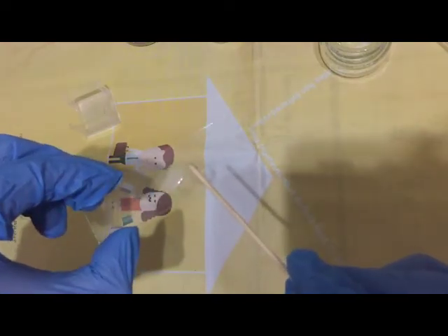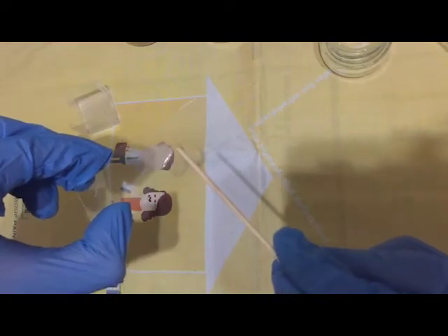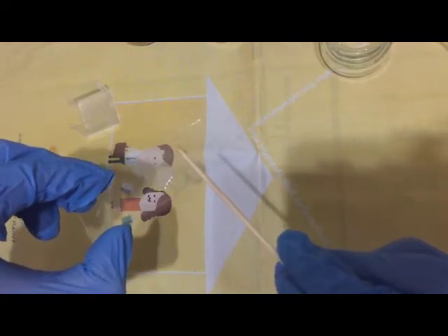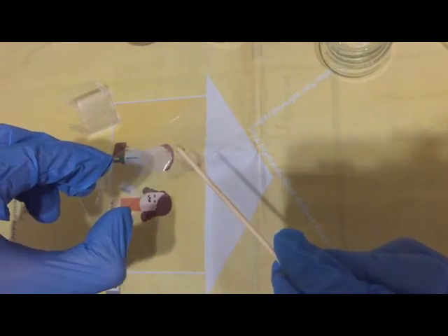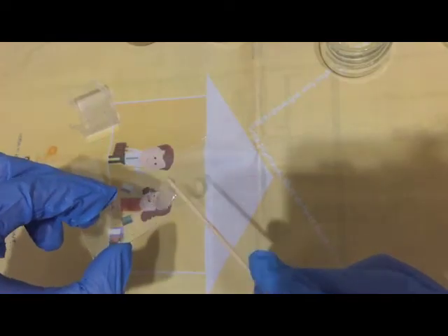So I hope you can appreciate the turbidity there. Let's put it over the face of our cartoon character. So there is sufficient turbidity seen in the water of the NSS.